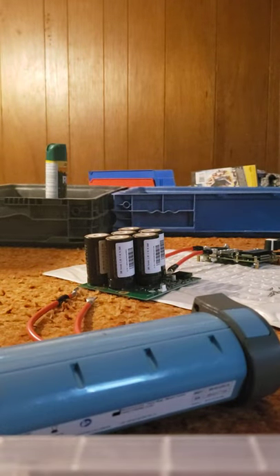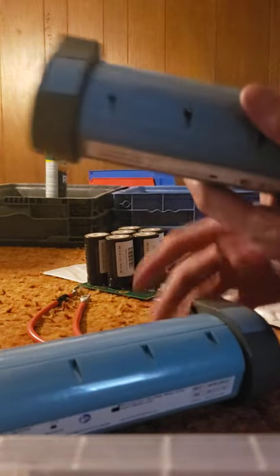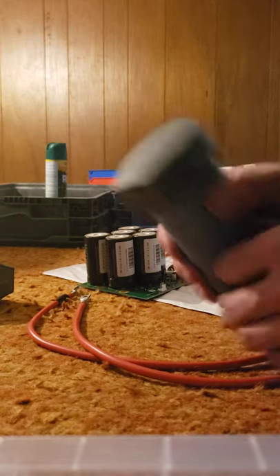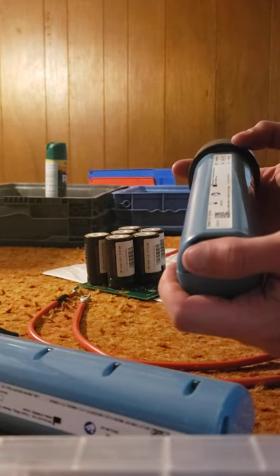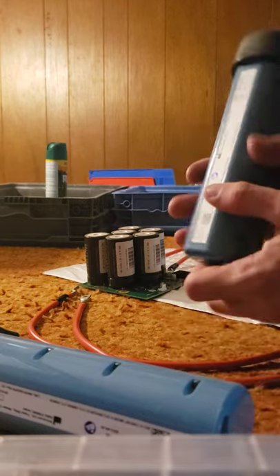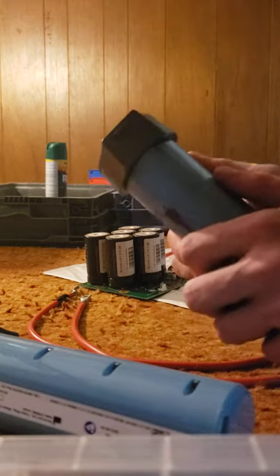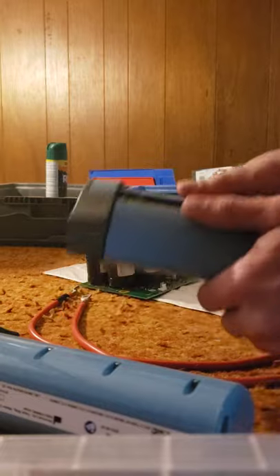I think I figured out how to open these things. These are from a battery hookup, on sale from eight to six dollars on Black Friday. They're Optune, O-P-T-U-N-E, model number IBH9100. It looks like they go into some kind of device that either shocks your brain or stimulates it — it's for brain tumors. I just managed to get it opened up.